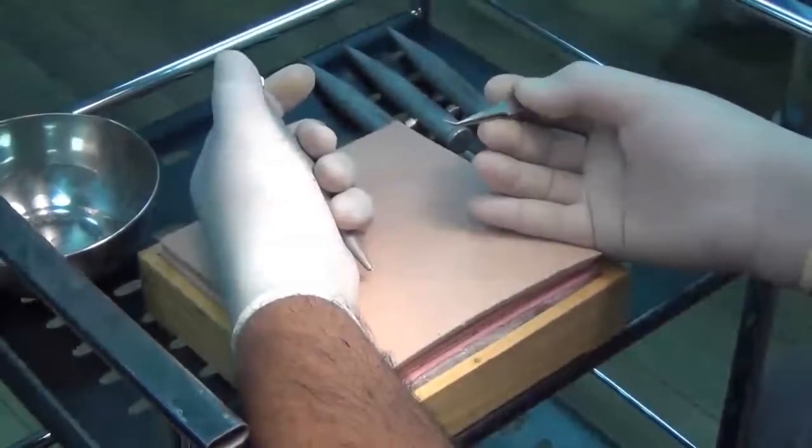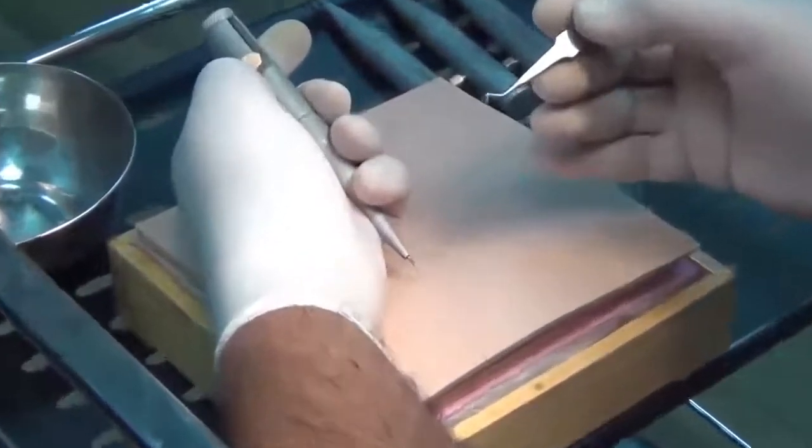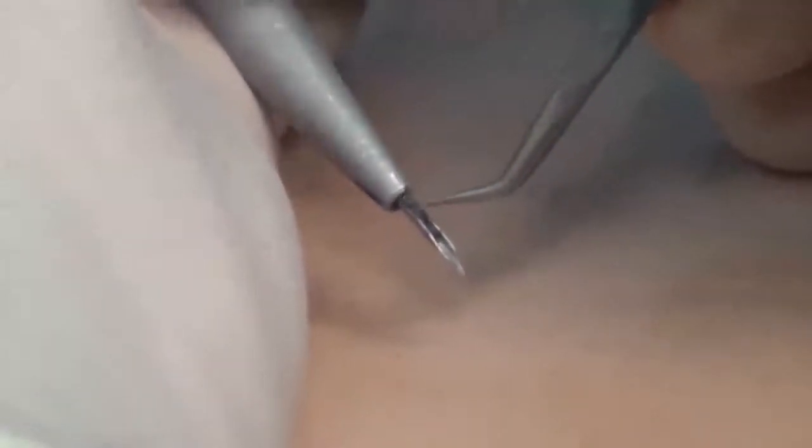The graft engagement process. Press the plunger to its full extent and lock it. Now simply place the graft in the exposed needle slit, with the upper end of the graft lying free from the needle. That's it — the pen is now ready for implantation.